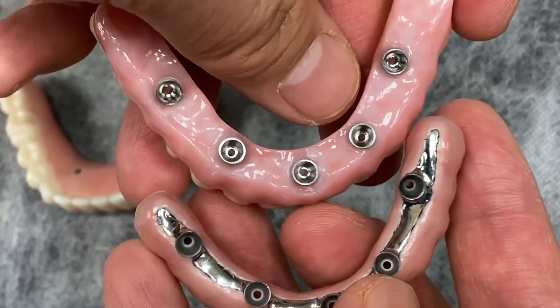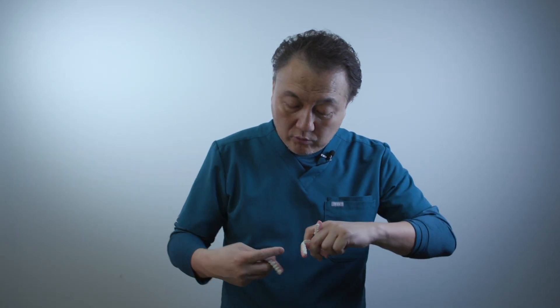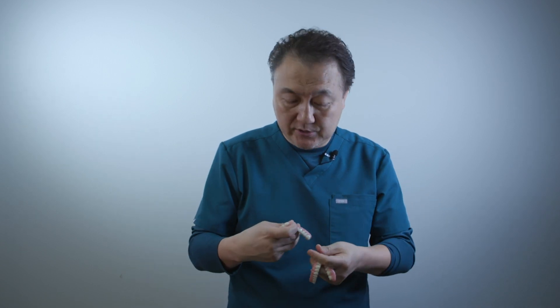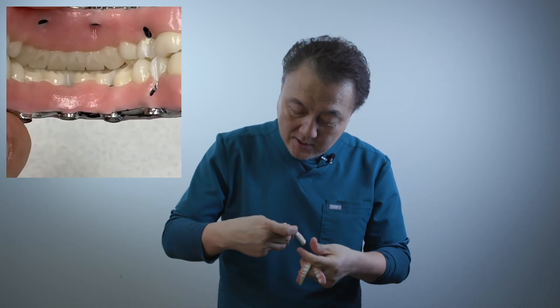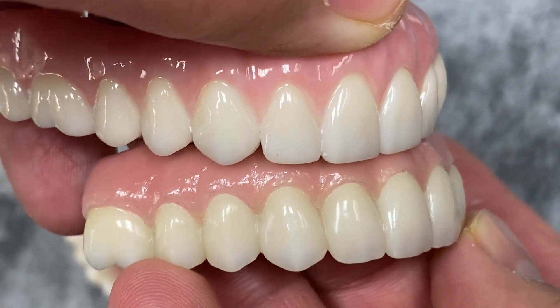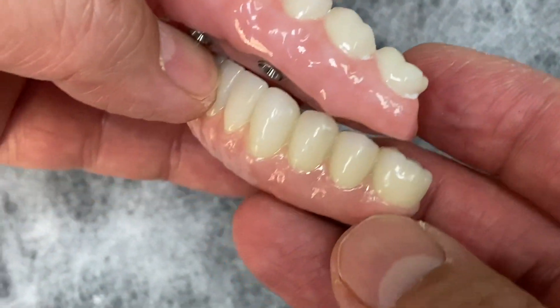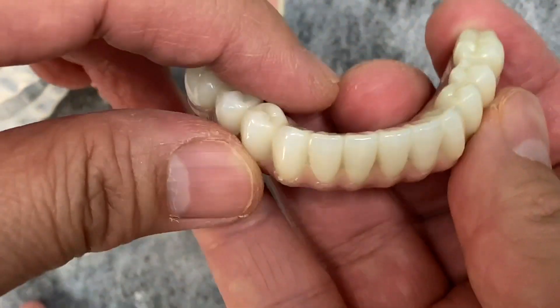The 7 Star frame design is very thin and nicely done underneath compared to the monolithic zirconia — that's a huge difference. For occlusion, the other restoration looks flat, but here we make really good occlusion anatomy. We also utilize our skill level — the tissue texture looks better compared to the other smooth surface. We try to make it fit like a custom tailor.